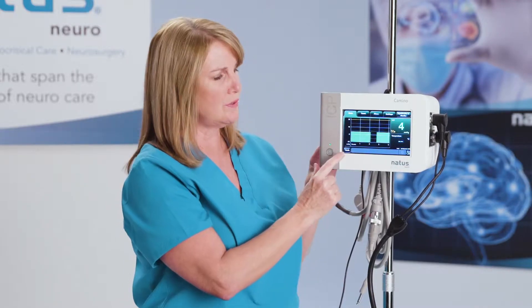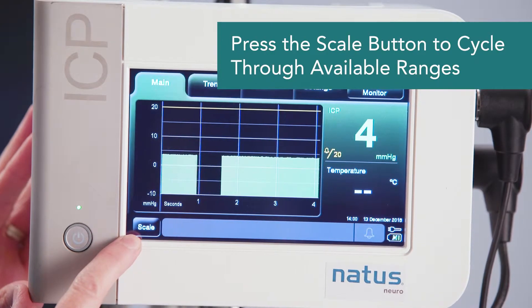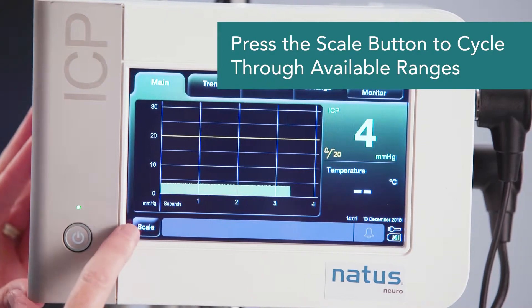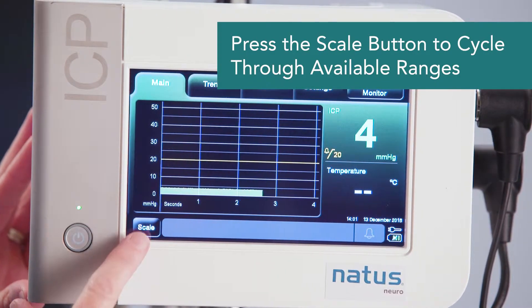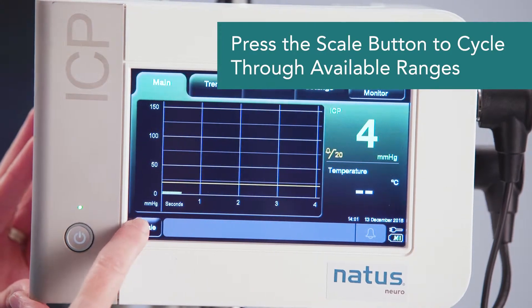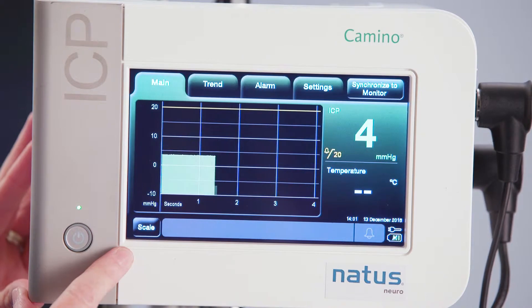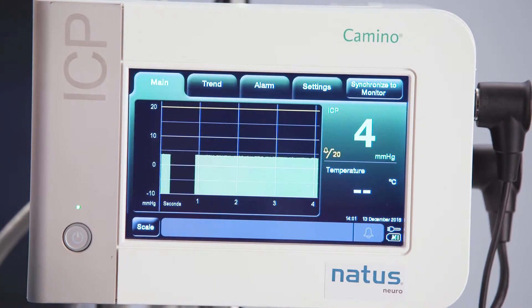In order to do that, I'm going to use the scale button down in the bottom left-hand corner. If I touch it one time, it goes to 0 to 30. If I touch it again, 0 to 50. Again, 0 to 100. And then lastly, 0 to 150. And it cycles back around when I touch it one more time to negative 10 to 20. So that's how you optimize your scale.